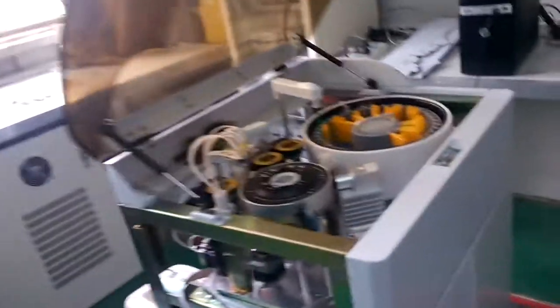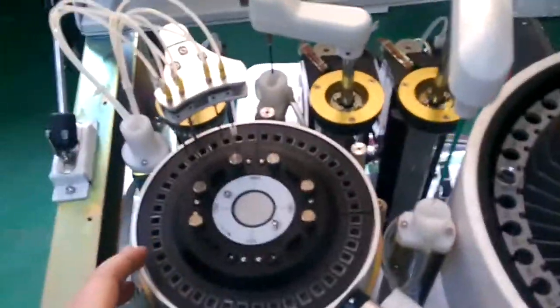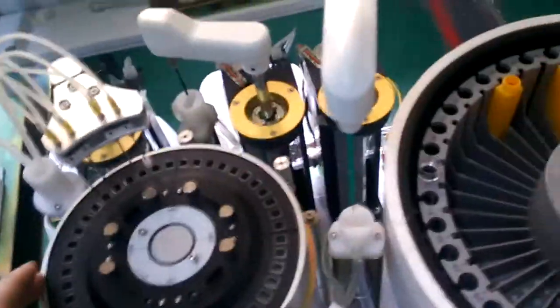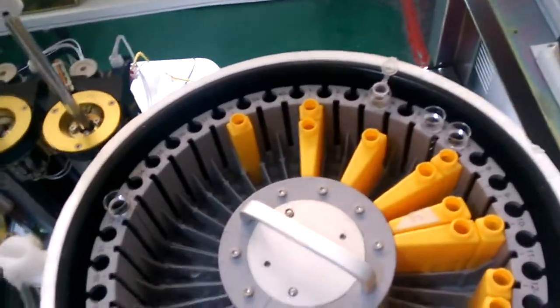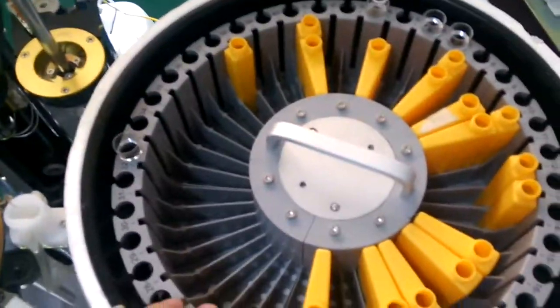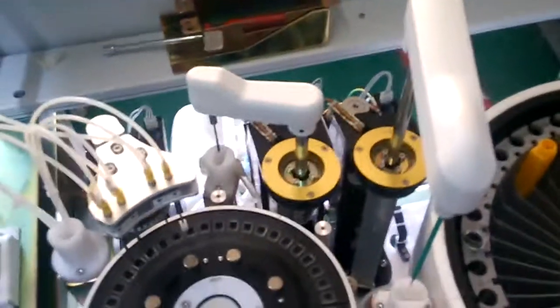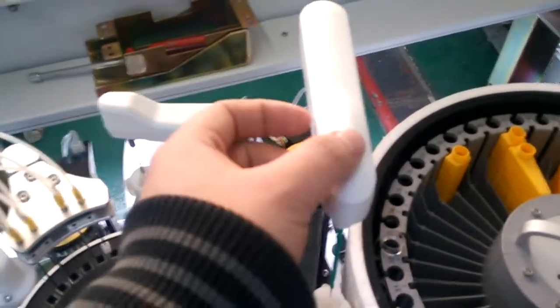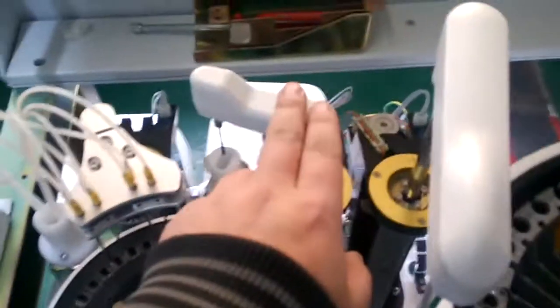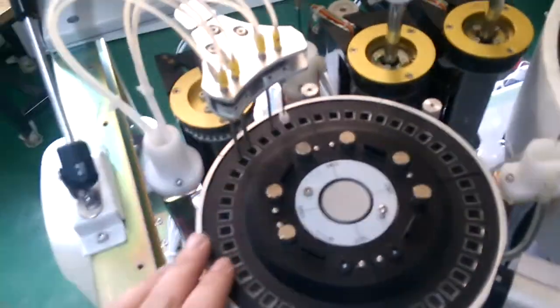This is the machine during the testing process. This is the reaction tray. This is the reagent tray. Dispensing arm. The mixer. The washing system.